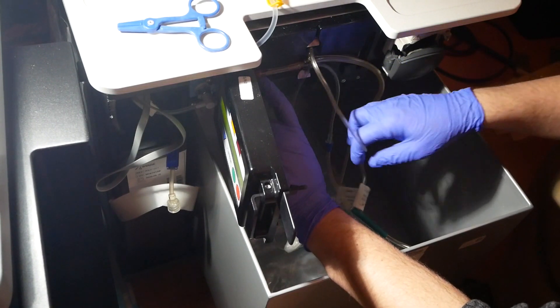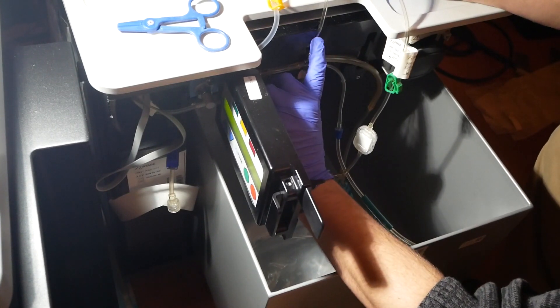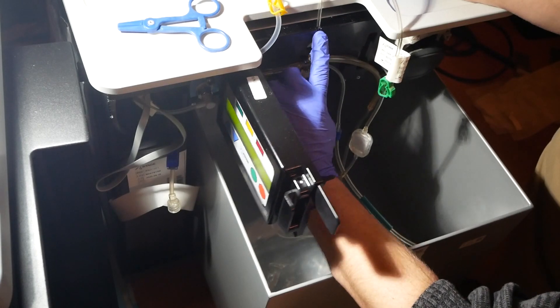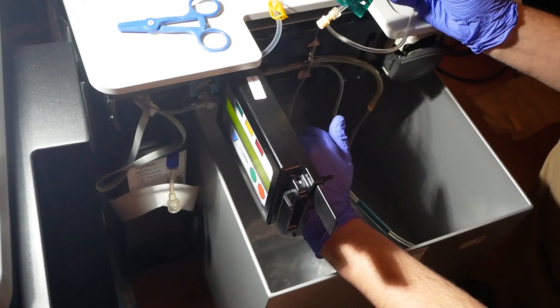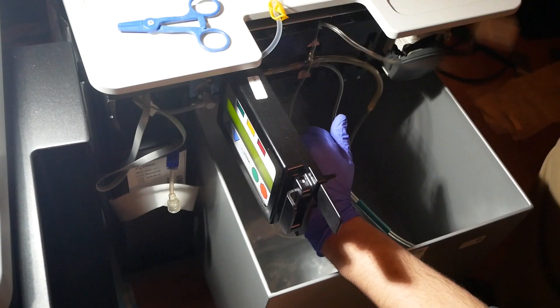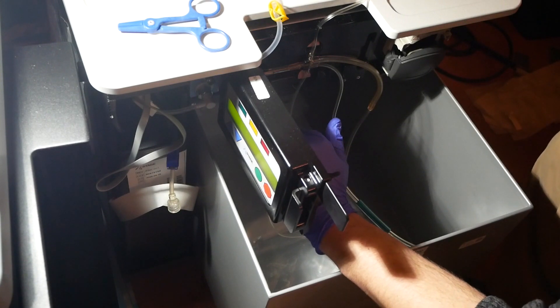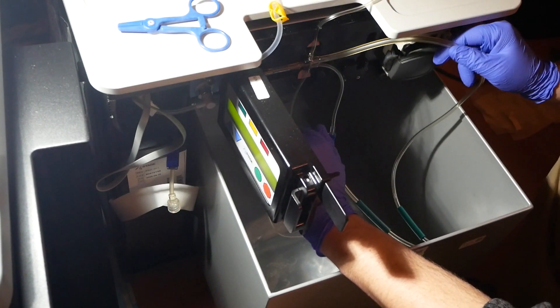The spot where all the other lines come out is right here in the center. You'll see one line goes up to the top and it needs to be pushed into the track right here - that is your chicken foot line. Once I put that in, I just lay this down on the edge here to get it out of my way.